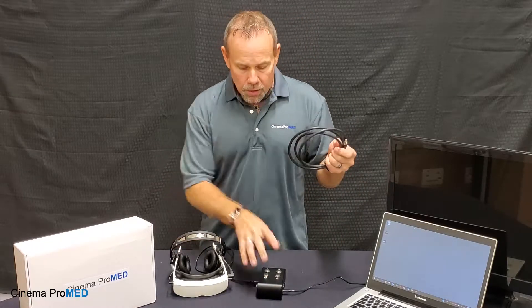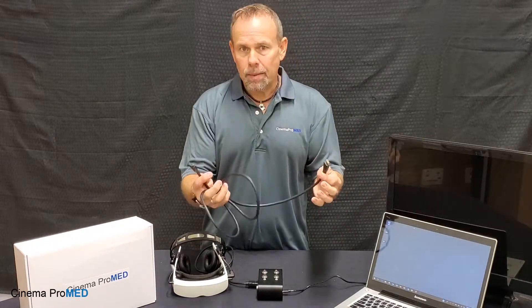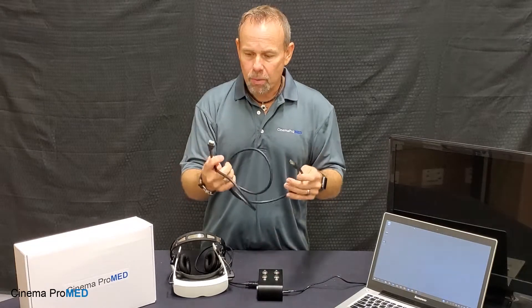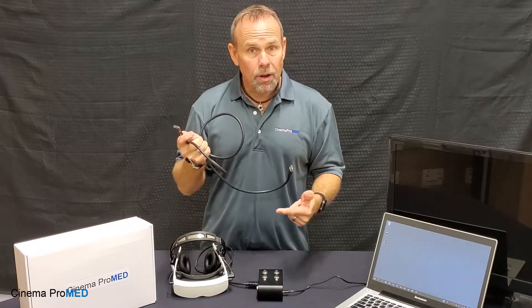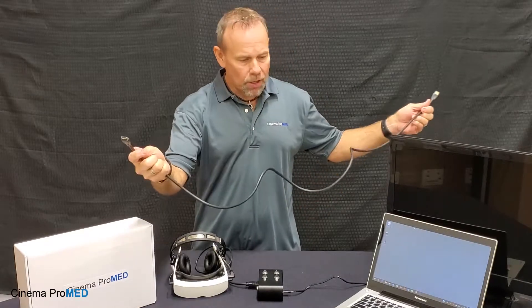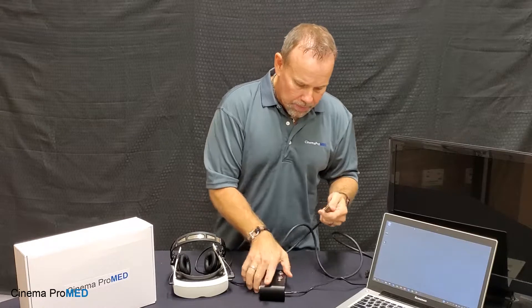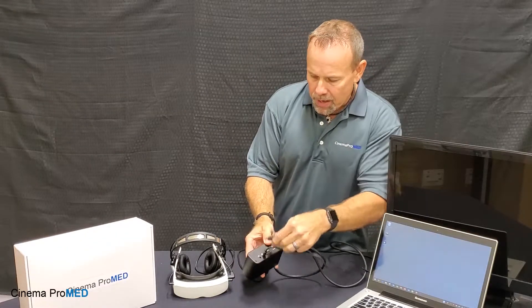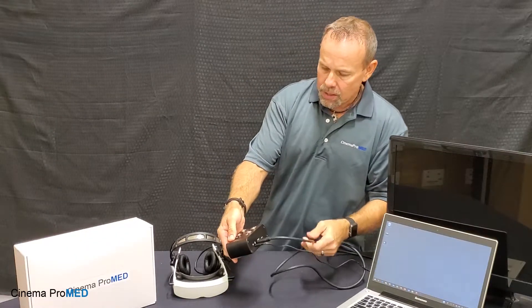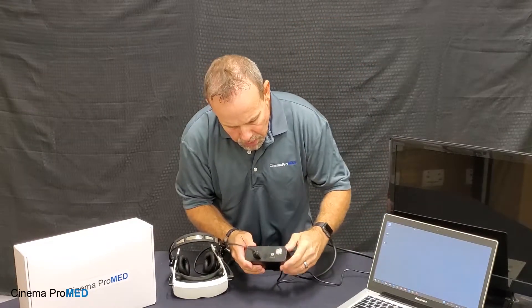We're going to use the Cinema ProMED headset. You'll need to get an HDMI cable — the Cinema ProMED does not ship with a separate HDMI cable for video input, so you'll need to provide that for whatever length you need. We're going to take the HDMI cable and plug it into the HDMI input on the box, then go ahead and power the goggles on.